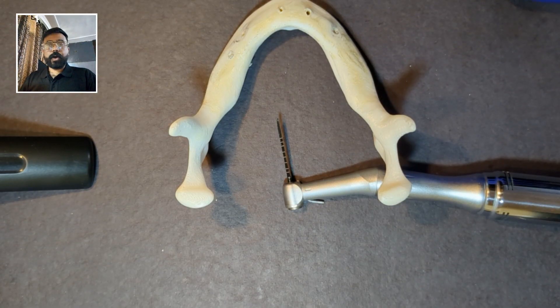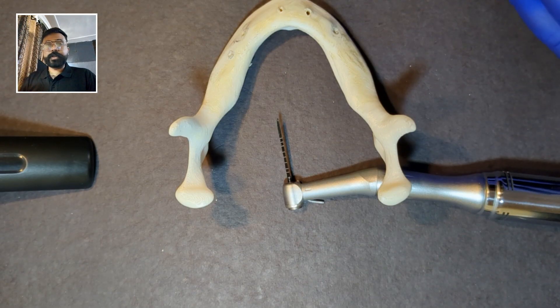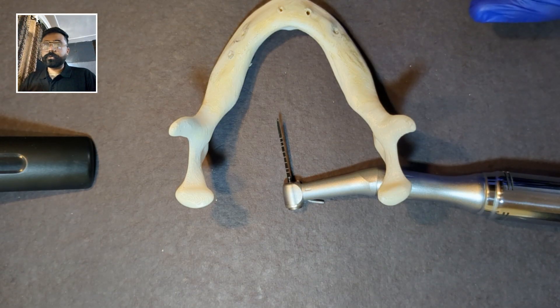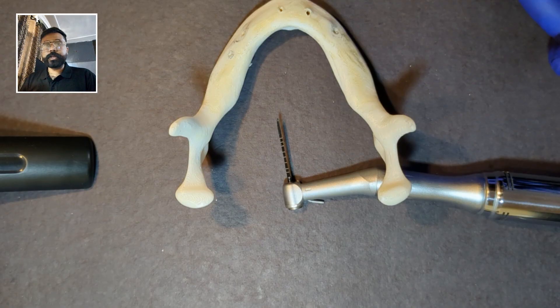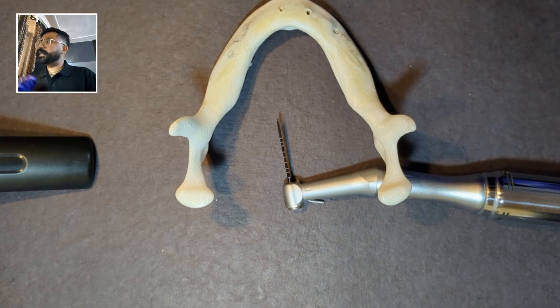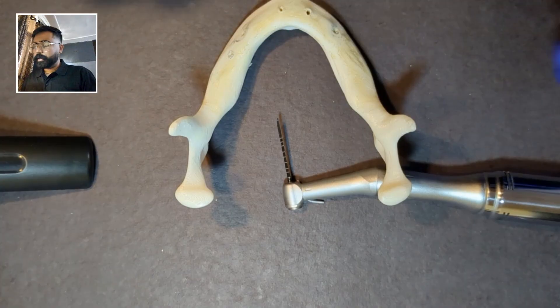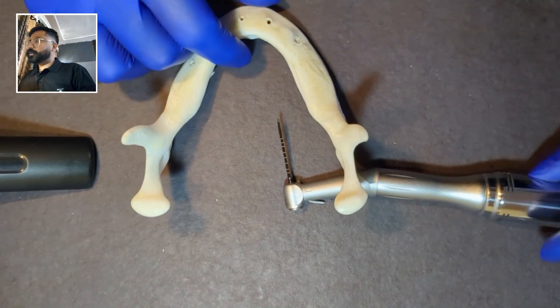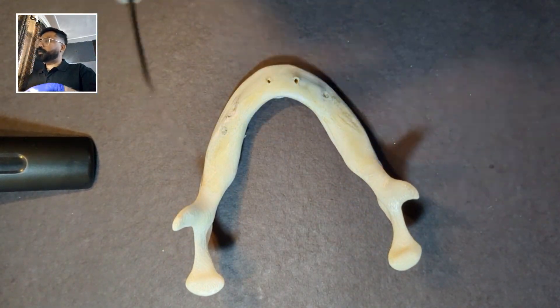Today we will be talking about lingual cortical engagement, which is a technique used in basal implantology. For this we will be taking help of this model right here. I hope everyone can see the model.